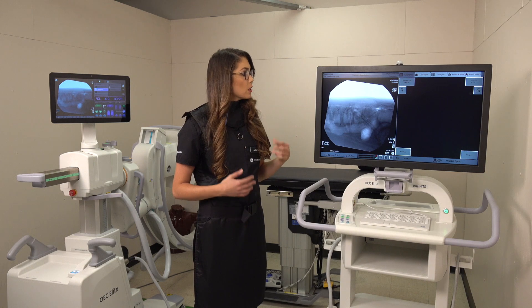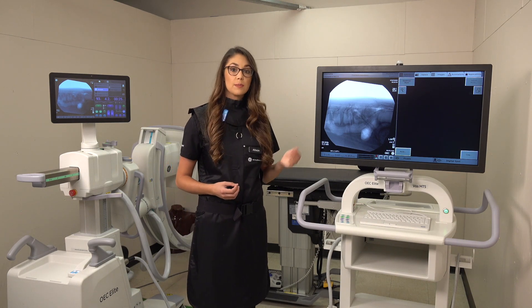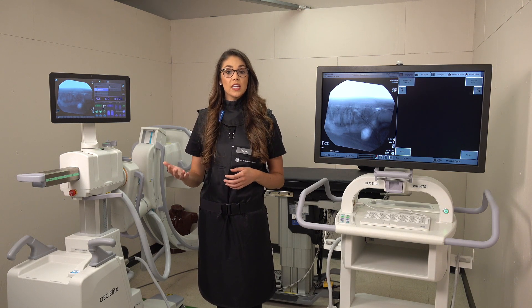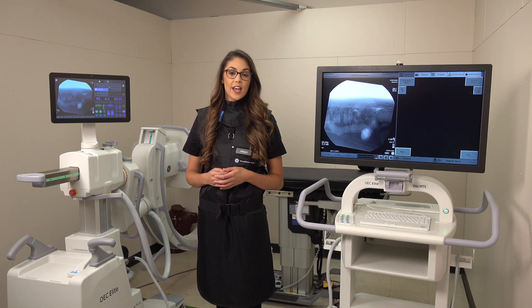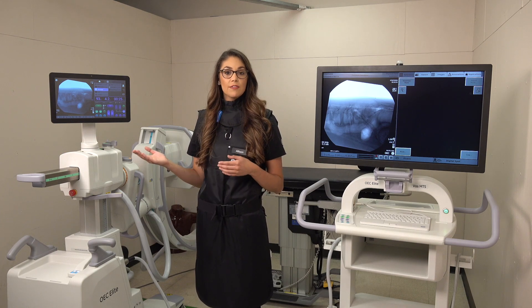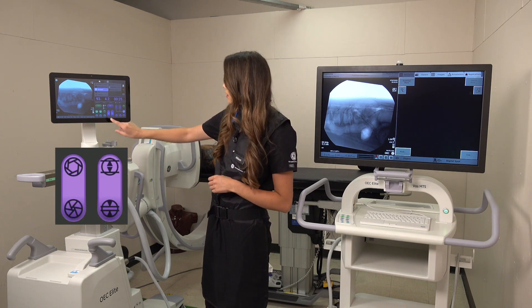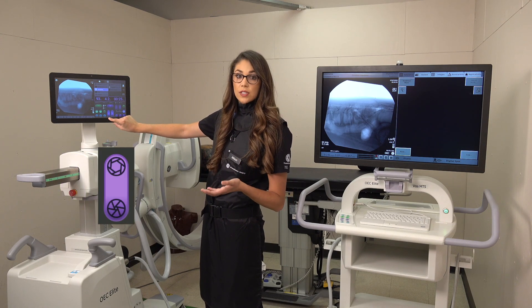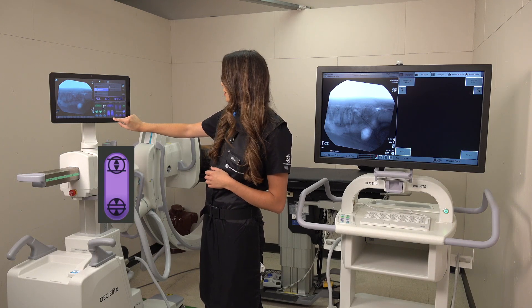By using two collimation tools we can remove this and have better image quality. We have two collimation tools to choose from: dual leaf collimators or iris collimators, otherwise known as linear collimation or circular collimation. You can find these on our touch control tablet right at the bottom here. On the left-hand side you have your circle or iris collimation, and on the right you have your dual leaf collimators or linear collimation.